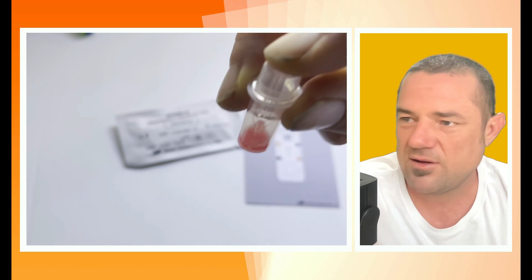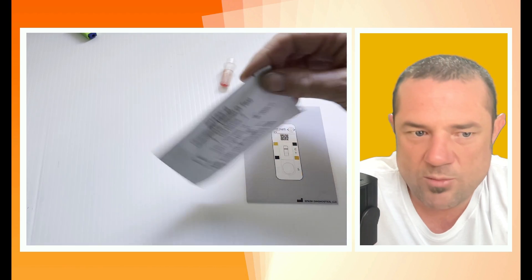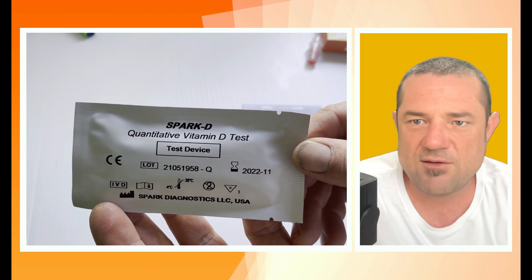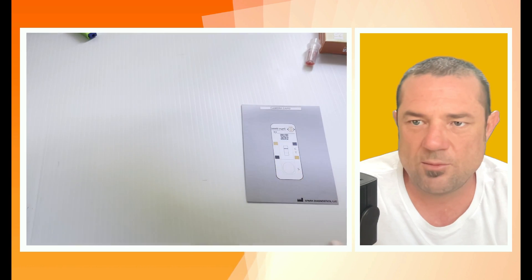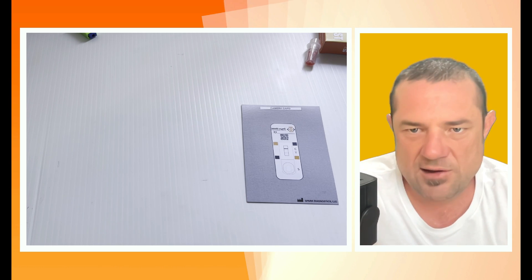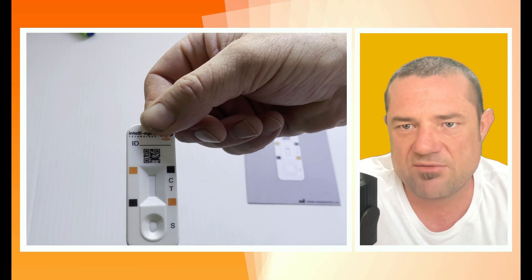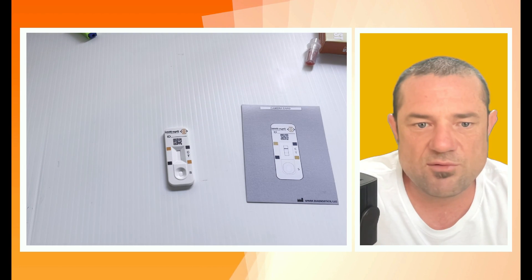You're ready to put it into your cassette. You'll have seen these cassettes before — they're pretty common nowadays when everyone's getting tested for, you know what. Open your Spark D quantitative vitamin D test pack, remove it from the foil. The test cassette itself is pretty simple: it's got a control line, a test line, and a well where you're going to put a couple of drops of your blood-buffer solution. Lay it down and add the buffer solution — you only need three or four drops.